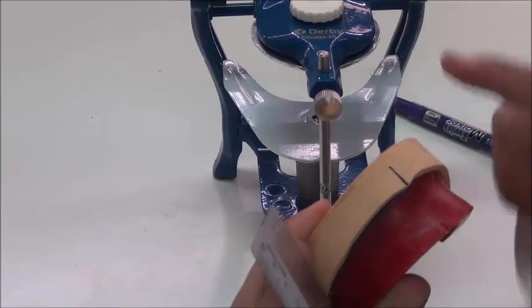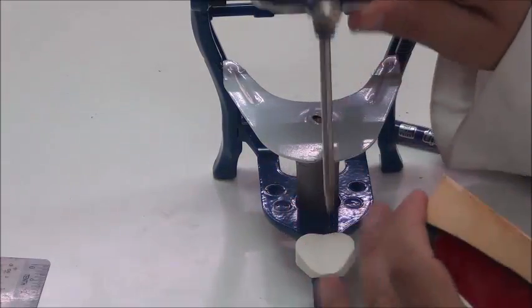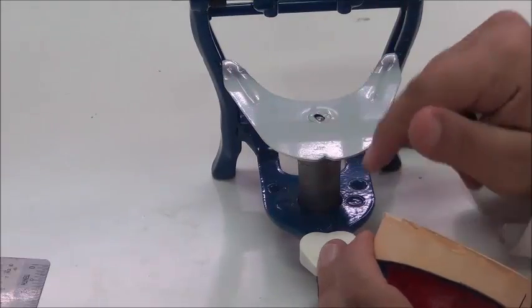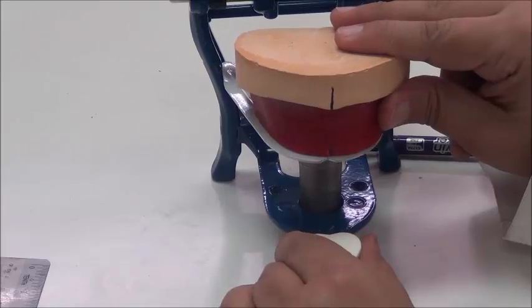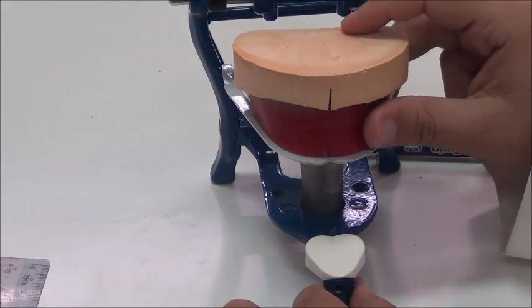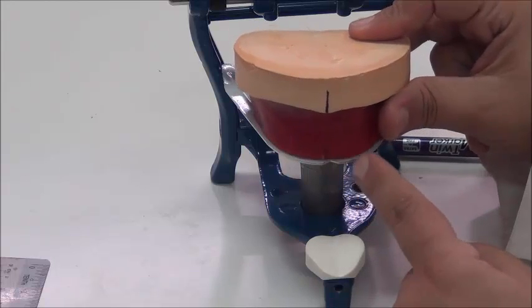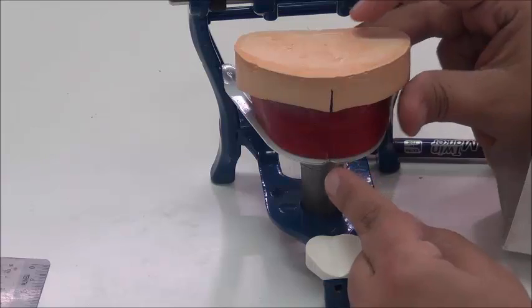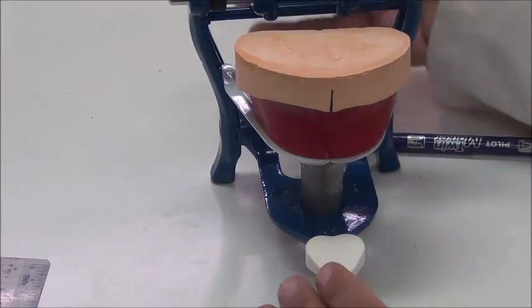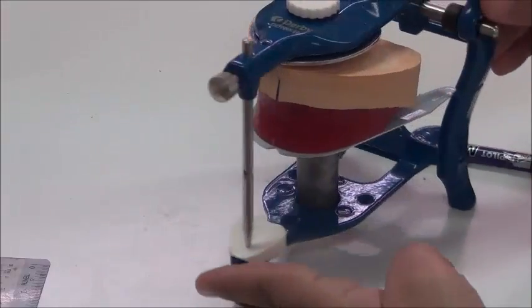So I want to place this over the articulator. So I open the upper member. Here we have the jig mounted. So I place my wax rim with the cast over this and make sure that this line is coinciding with the midline of the jig. Okay? So the midline is over the midline. It's not only that, I also need to close this upper member and then compare posteriorly.